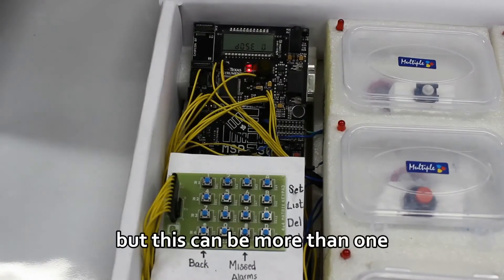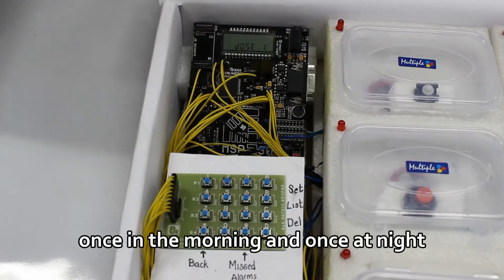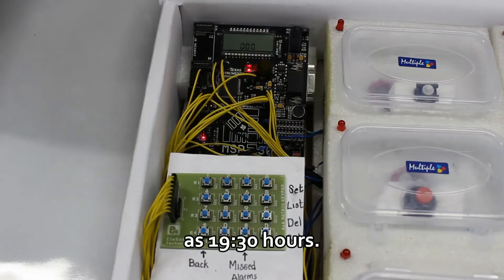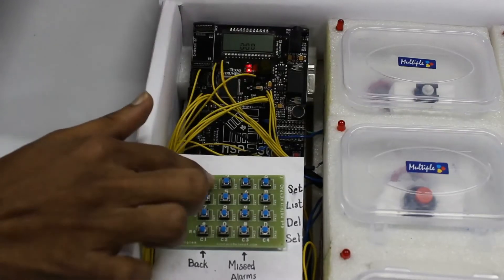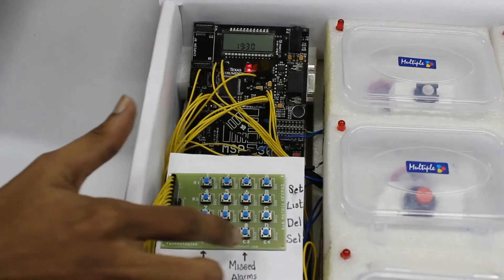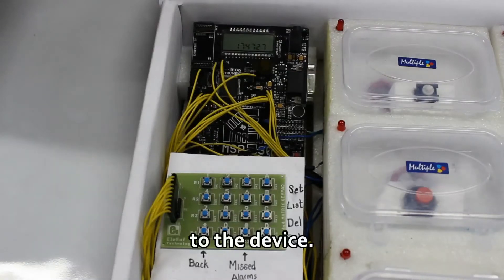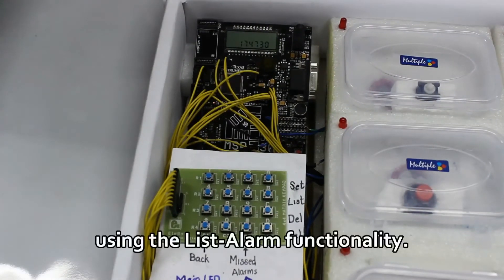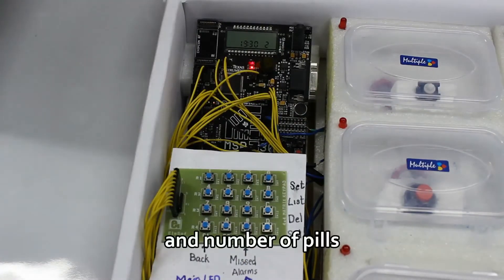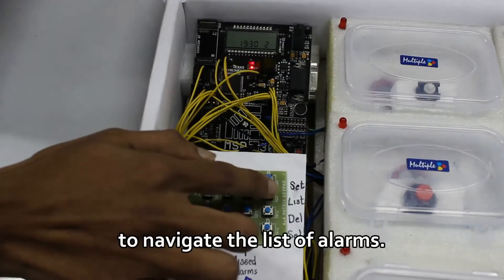For example, some medications are taken twice, once in the morning and once at night. Let's enter the time of the alarm as 19:30 hours. The alarm has now been added to the device. It can be viewed using the list alarm functionality. You can see the time and number of pills for the alarm that was added, and use the up and down buttons to navigate the list of alarms.